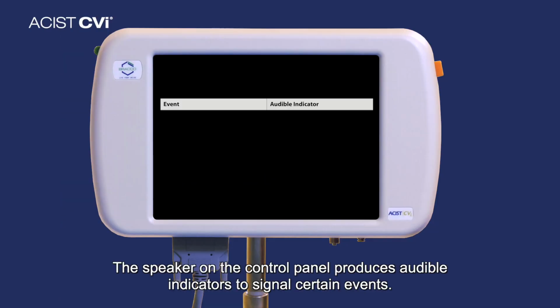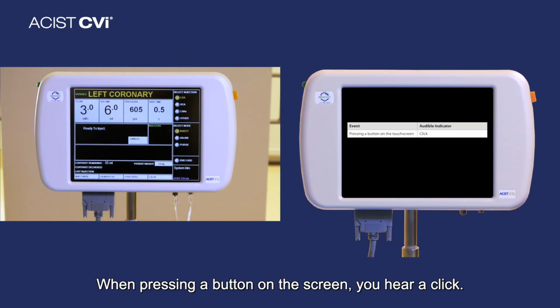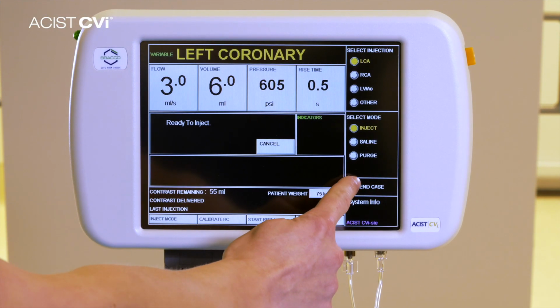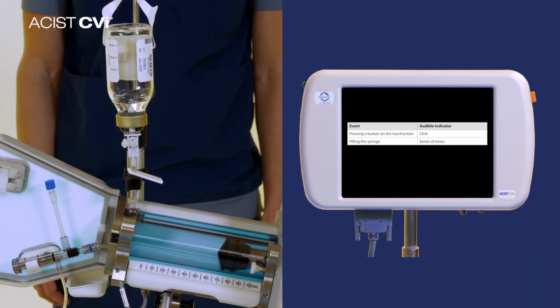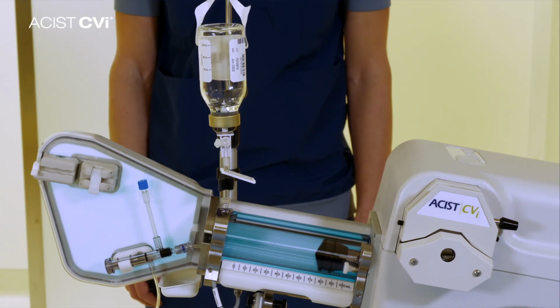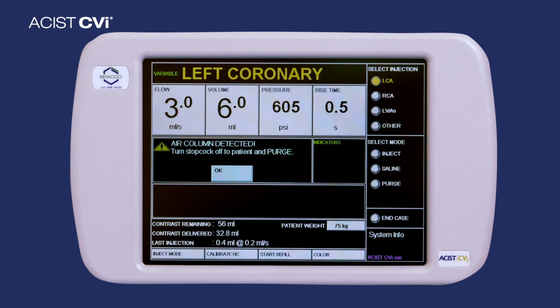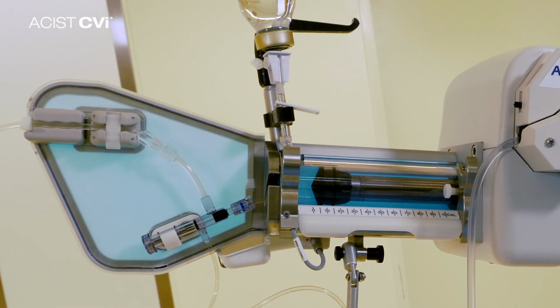The speaker on the control panel produces audible indicators to signal certain events. When pressing a button on the screen, you will hear a click. When the syringe is filling, you will hear a series of tones. With an alert message, you will hear a beep. You will hear a repetitive beep during a contrast injection.